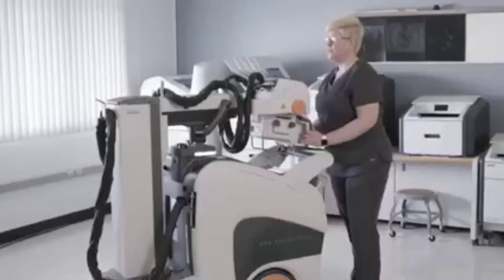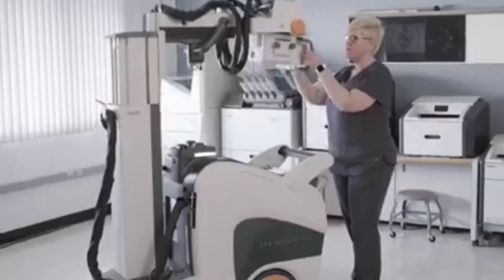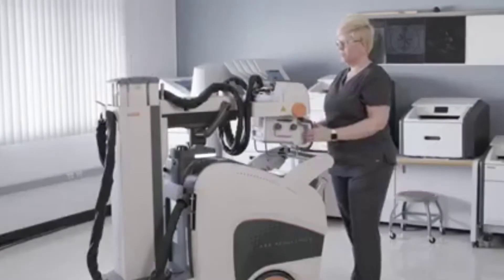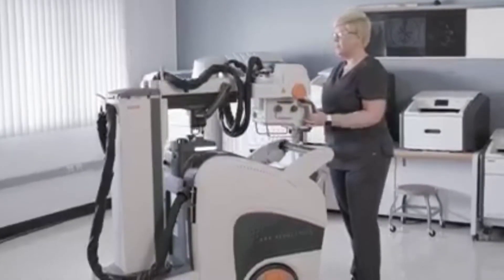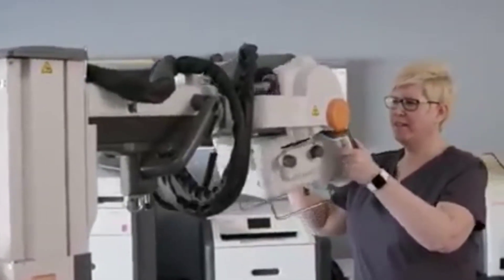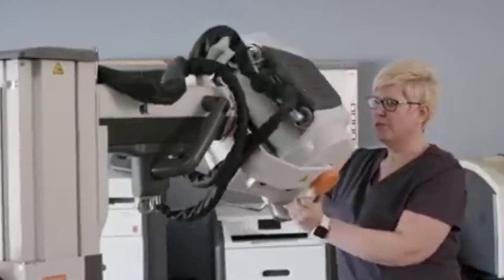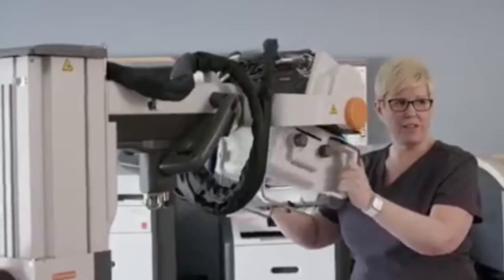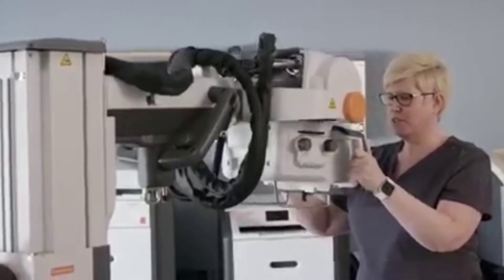They have also added a quiet cap on the collapsible column that eliminates the sound of the clicking that you would normally hear when the column is moving up and down. In addition to that, the brakes in the tube head itself have been quieted. So normally the clicking and rattling that you would hear when a tube is being positioned over a patient — all that noise is pretty much eliminated.